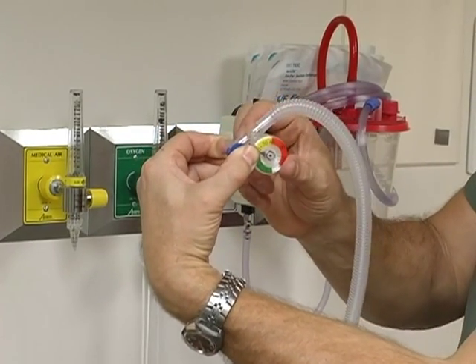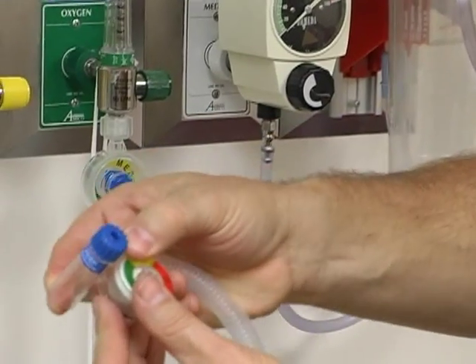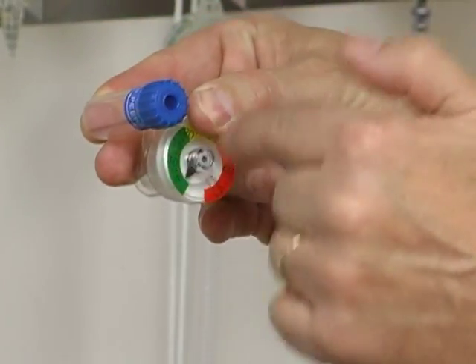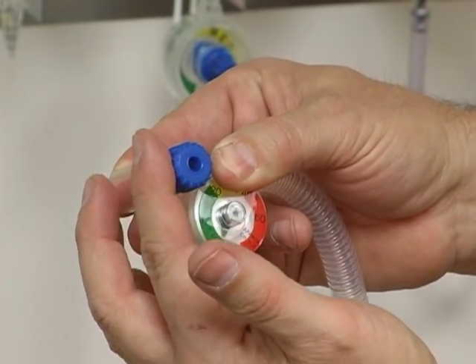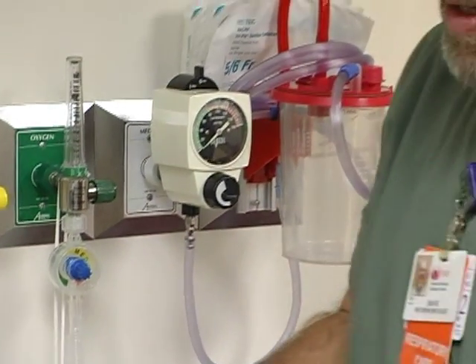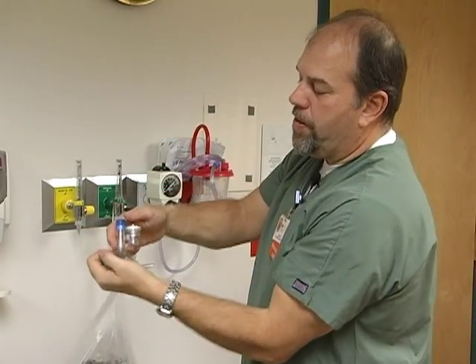I'm going to adjust this to 20 over 5. You adjust to 20 with your controller, then — same as the Neo-Puff — you adjust your PEEP. The blue cap is your PEEP and you adjust it up or down as needed for the flow. We're going to adjust it to 5. So now we have 20 over 5. We attach our mask and we're set and ready to go, delivering the set pressures to the baby.